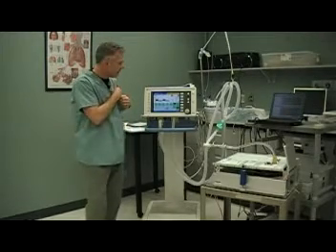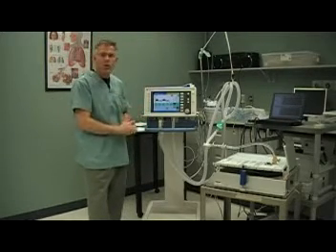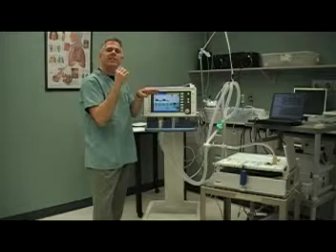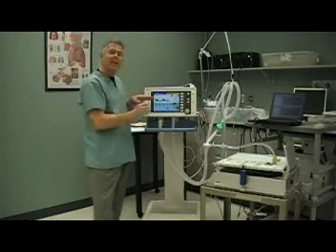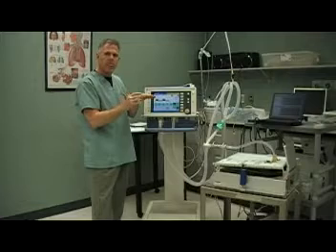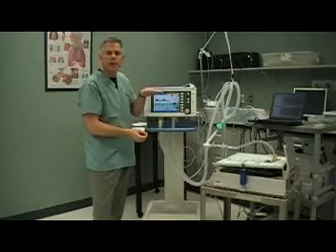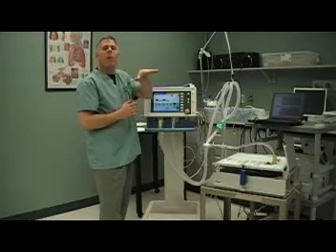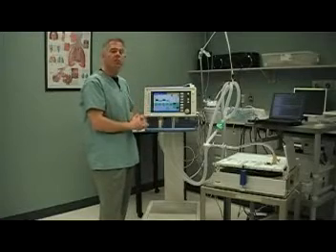The mode of pressure-regulated volume control, or PC CMV adaptive, works just like all pressure control modes in that it sets a pressure control level. The difference is that this mode is adaptive to changes in my patient's lung characteristics. I set a volume target, and the ventilator will adjust the pressure control level to meet that volume target. It measures the patient's lung compliance and determines the amount of pressure control required to achieve that tidal volume.